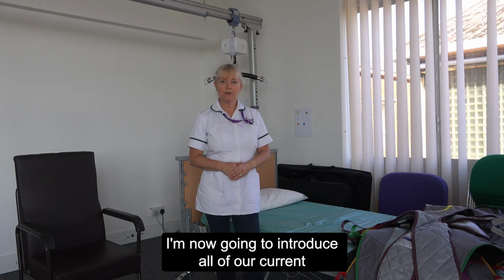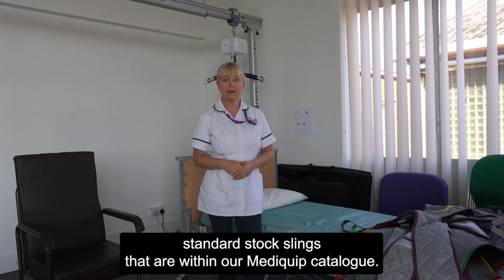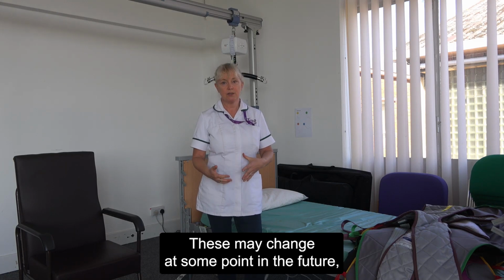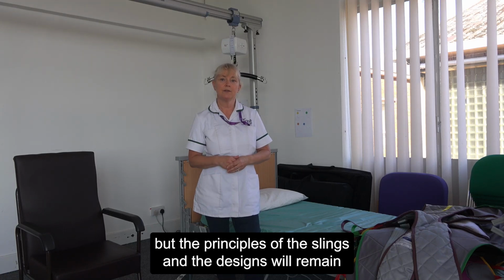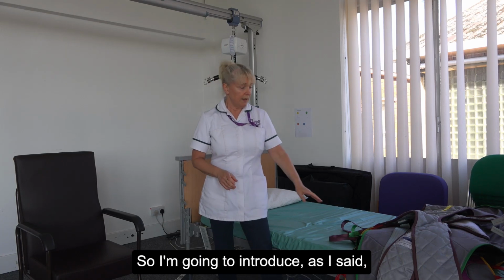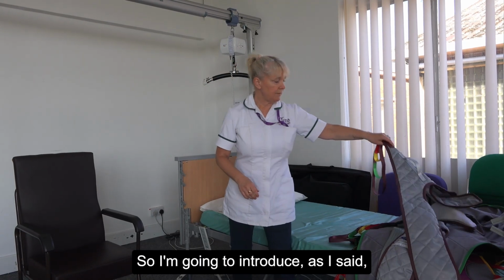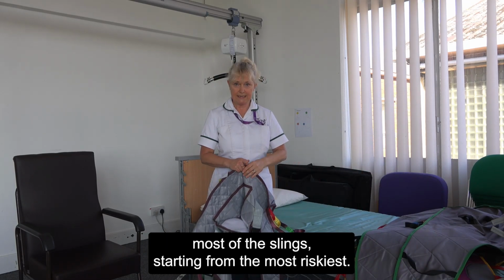I'm now going to introduce all of our current standard stock slings that are within our Medequip catalogue. These may change at some point in the future, but the principles of the slings and the designs will remain similar depending on the sling that you're using. So I'm going to introduce most of the slings, starting from the riskiest.